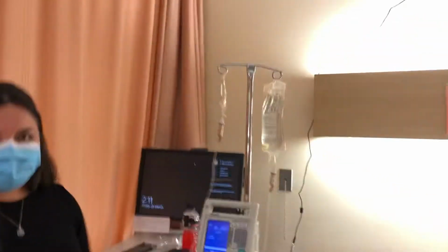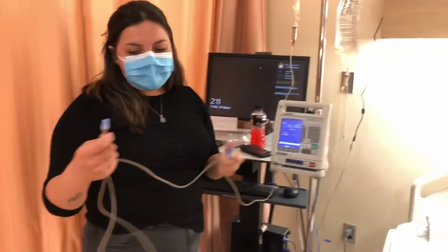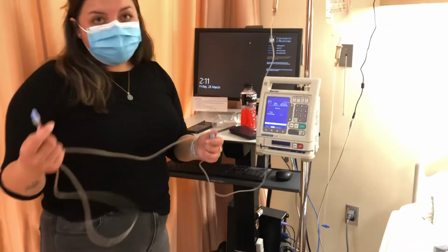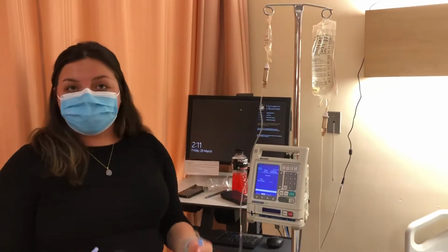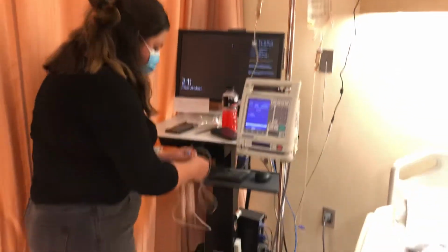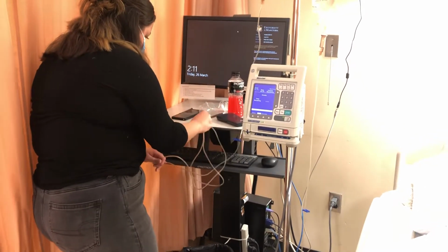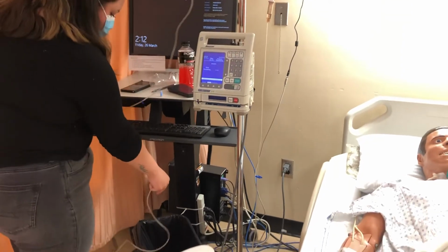So unfortunately in the lab setting, our tubes are sometimes already filled with saline. But in a real setting, I'm going to be conscious of the fact that I am trying not to lose insulin at all because we want the full dose. So I'm going to go ahead and prime. I'm going to keep this cap sterile. Before going any further, as a student nurse, I'll grab 2 other nurses to double check my work. So I'm going to prime my line.